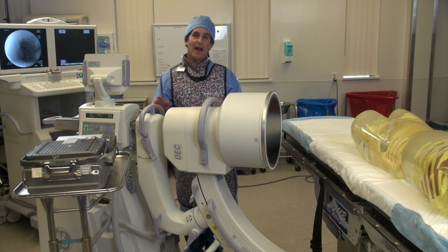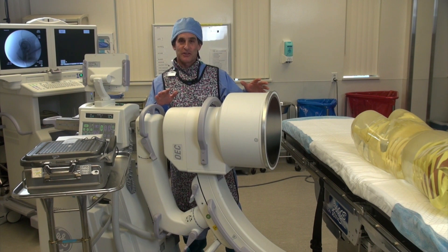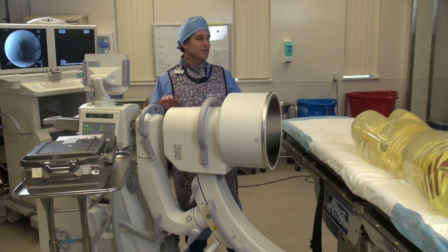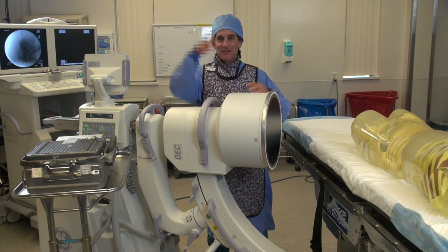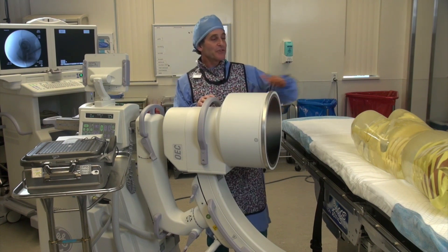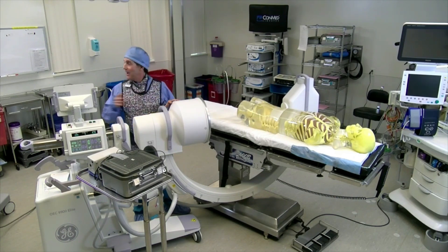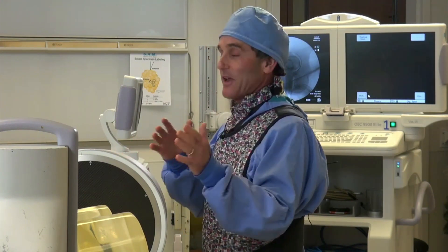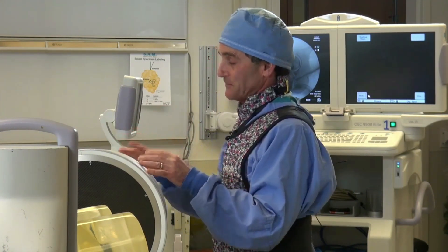Now we want to show you how much scatter comes out of the patient when you're doing a cross-table lateral hip. So we're set up — obviously it's not a real person so we can't have the leg up in the air like you really would, but we're set up at enough of an angle like you would normally come in on. You can see on the monitor we've already taken a bunch of exposures until we got this thing centered the way we want.